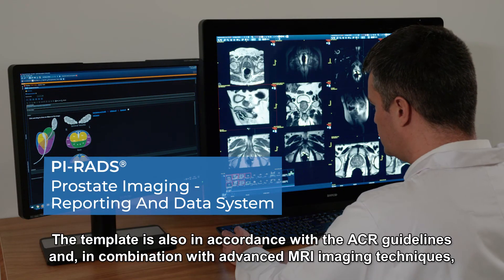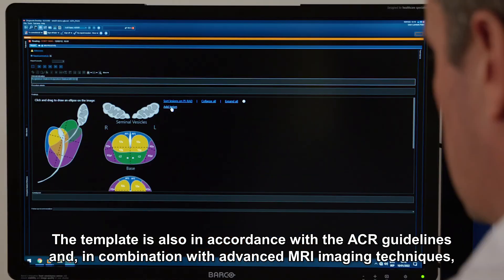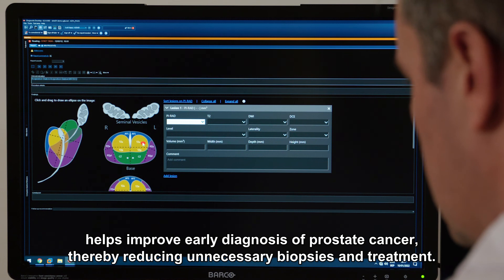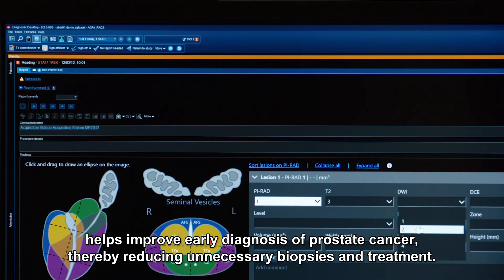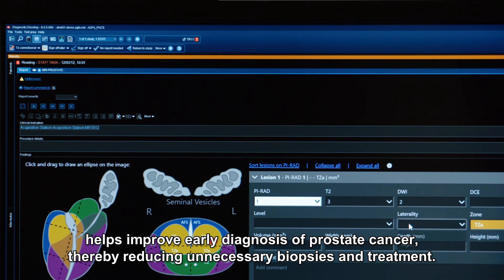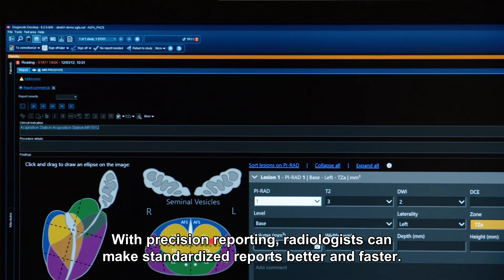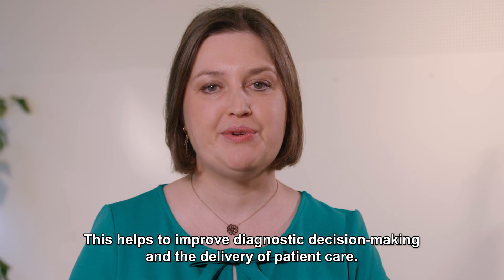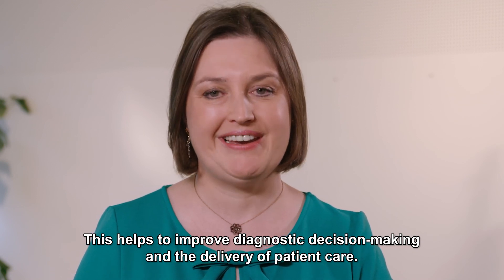The prostate template is also in accordance with the ACR guidelines and in combination with advanced MRI imaging techniques helps improve early diagnosis of prostate cancer, thereby reducing unnecessary biopsies and treatment. With Precision Reporting, radiologists can make standardized reports better and faster, helping to improve diagnostic decision making and the delivery of patient care.